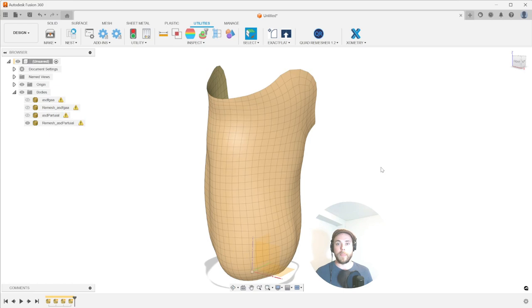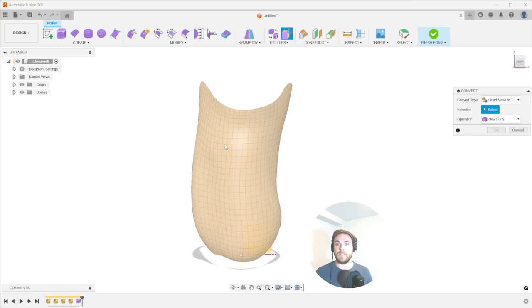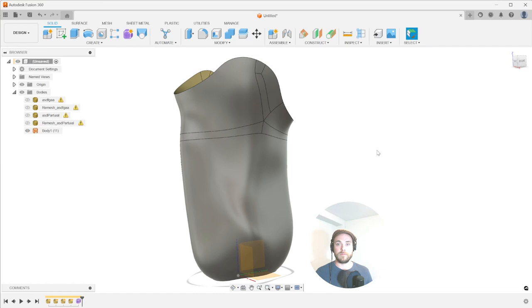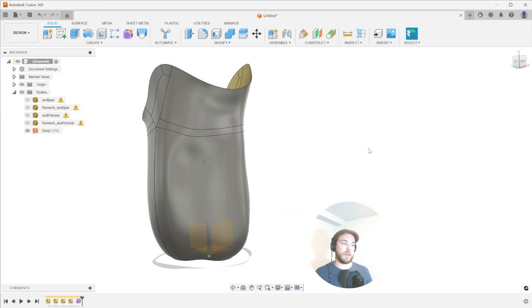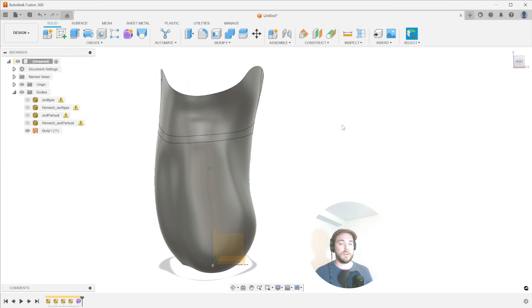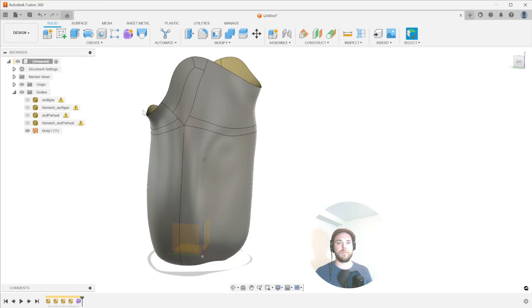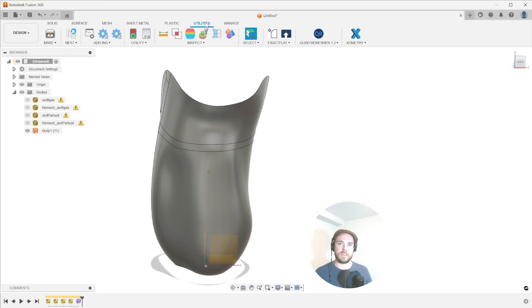It's really, really effective. I'm very excited to be able to offer this opportunity to the O&P field. Being able to go from your modified software into Fusion 360 without ZBrush is a game changer. So I hope this video helped. I hope this gets you excited about some of the opportunities this can present. I know many of you loathe learning ZBrush and by removing this one step, it's going to greatly enhance your ability to jump into 3D printing right away in one software, or maybe two using your existing modification tools rather than learning ZBrush.